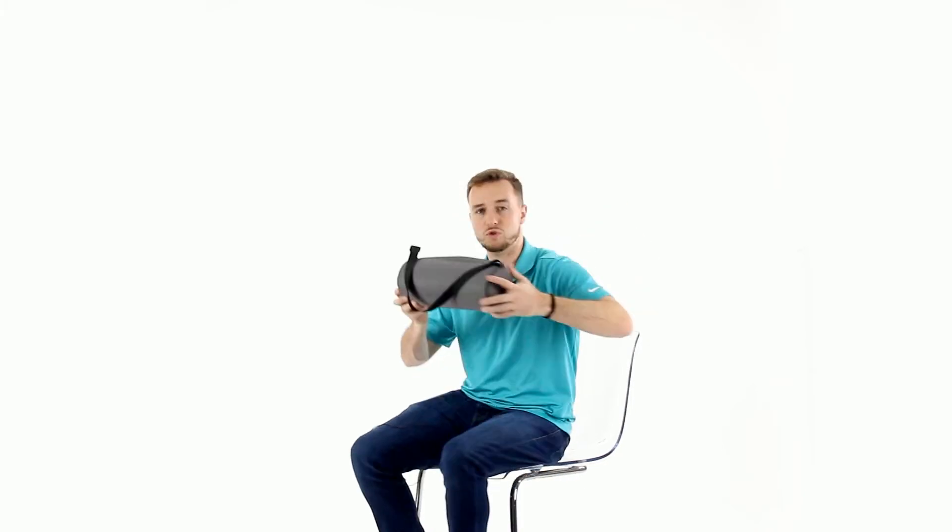You can also use this product underneath the neck as well. So if I wanted to lay down and get some cervical traction, I could lay on this as well.